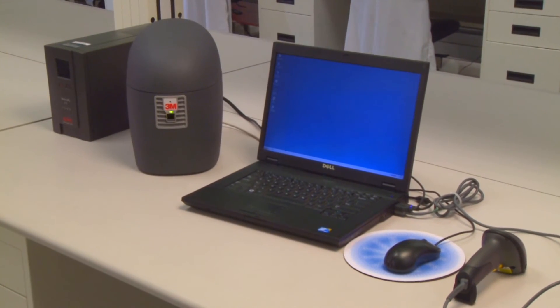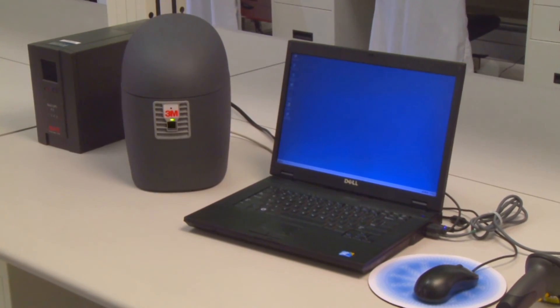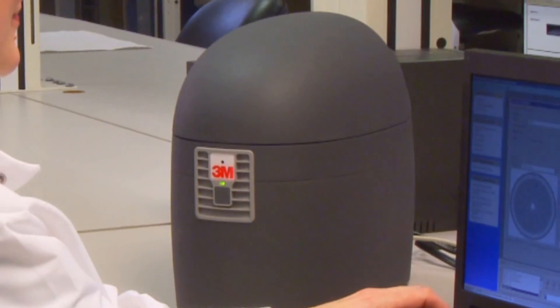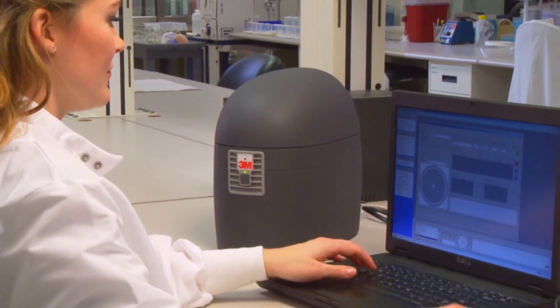Backed by thousands of test runs within Quest Diagnostics' own labs, 30 unique patents and capable of running a broad menu of chemistries, the Integrated Cycler is a fully integrated molecular testing system that will change the way you think about molecular testing.